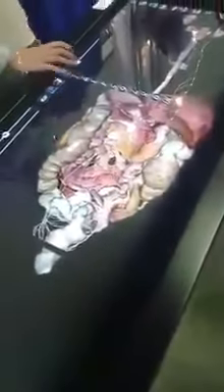This is amazing! In this case you can also have concurrent views of, let's say, the musculoskeletal system and the skeletal system, and also start removing different areas to see regional anatomy and other types of anatomy at the same time.